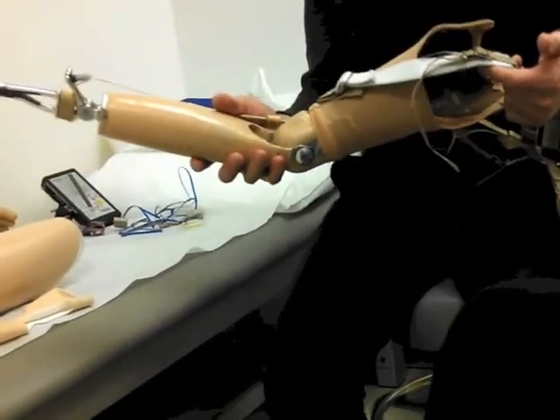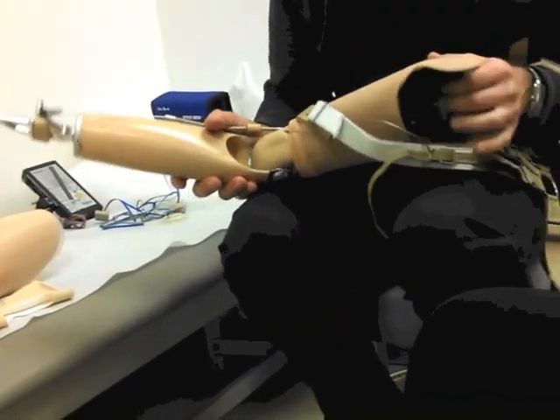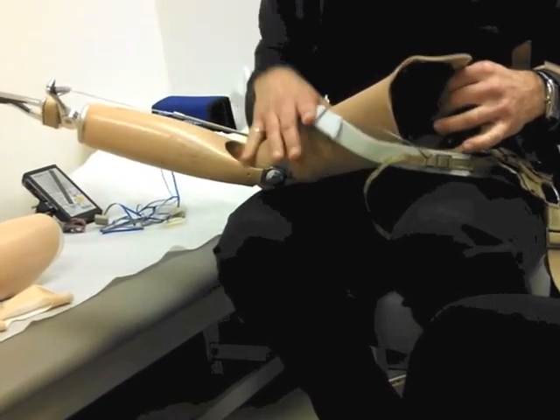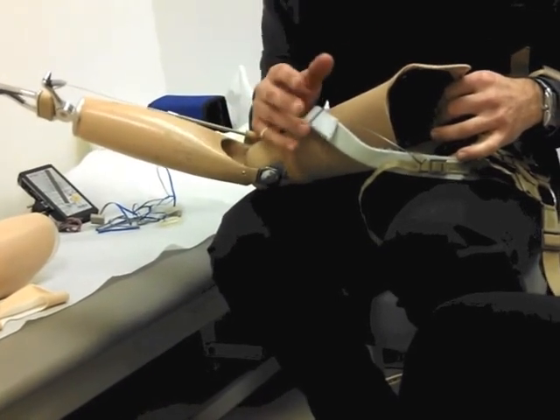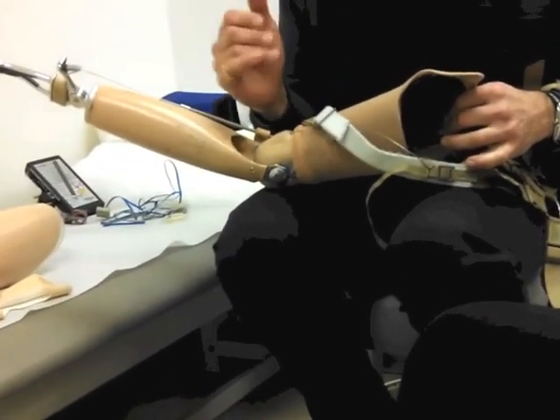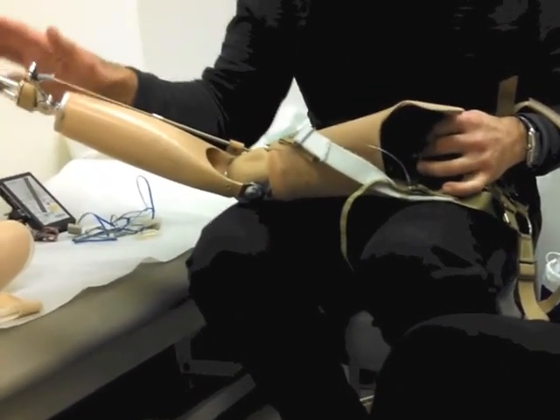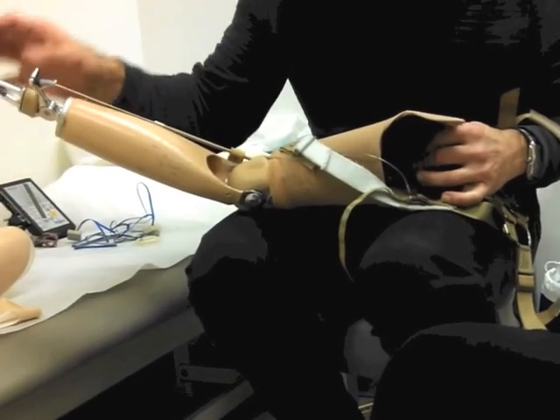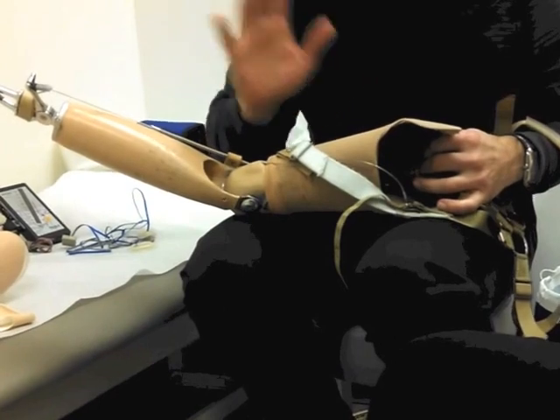This is the most common one out there used today. Why is that? It's because, for one, it's lighter — lighter than the myoelectric prosthesis. It's more durable. You don't have to worry about charging it. It can be rough-used if you had to, like people who work with it. And basically the hook, which is more functional than a hand itself, lets you pick up things and do a little more fine motor actions.